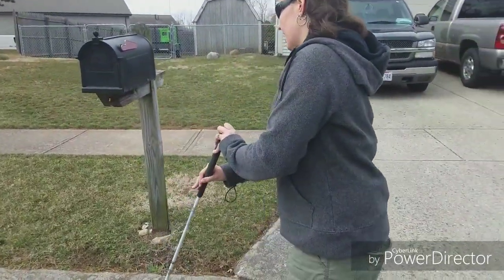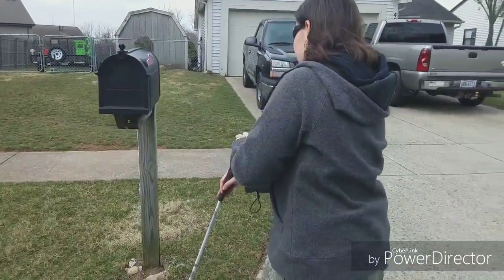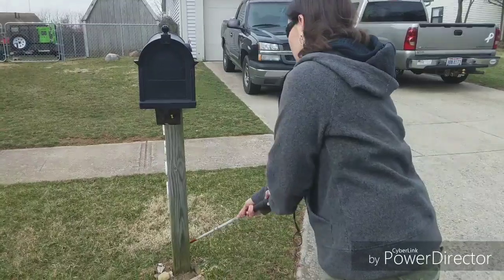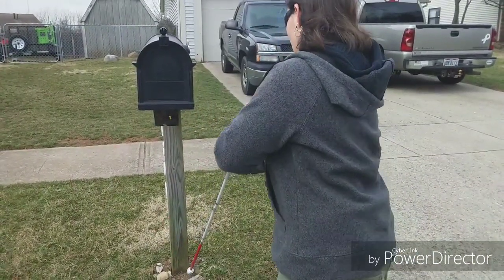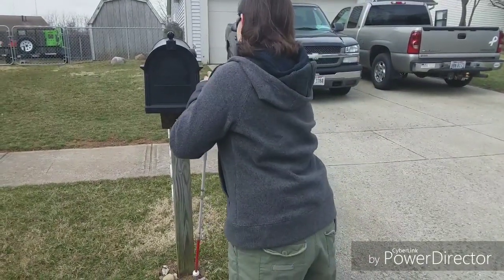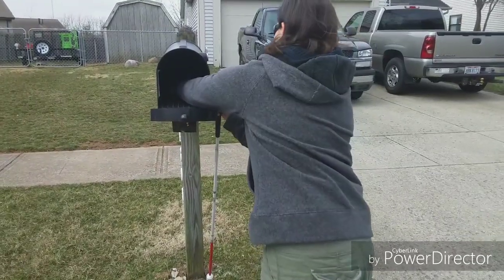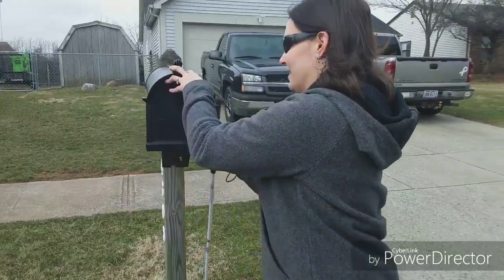You're close — it's offset about a foot and a half. I just had to find the sidewalk. There we go. Do we have any mail? Nope, no checks. Okay, so that's how I use my cane to find the mail — it takes a while, but I can do it independently.